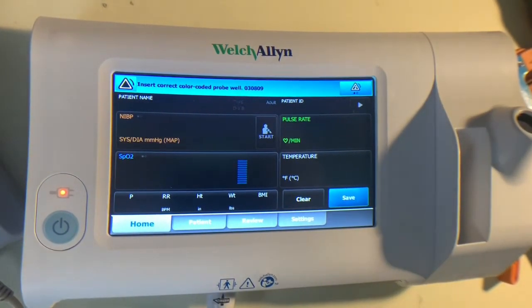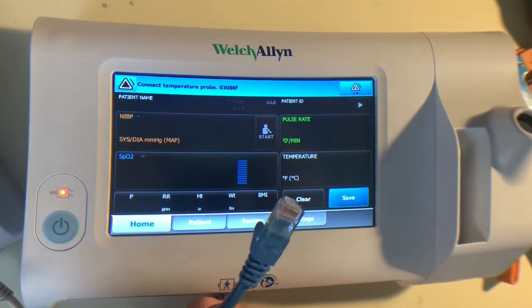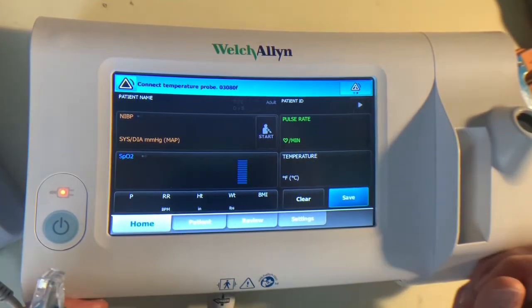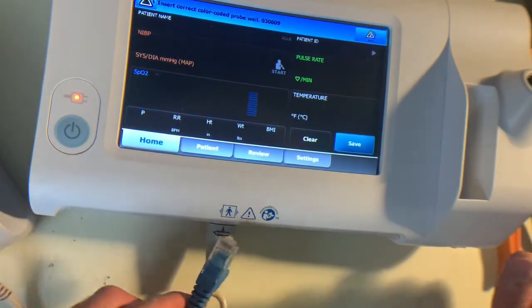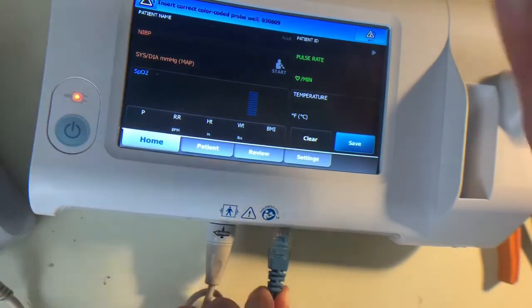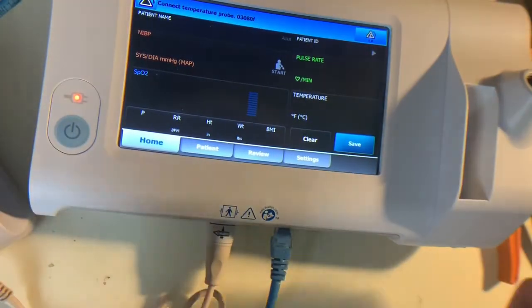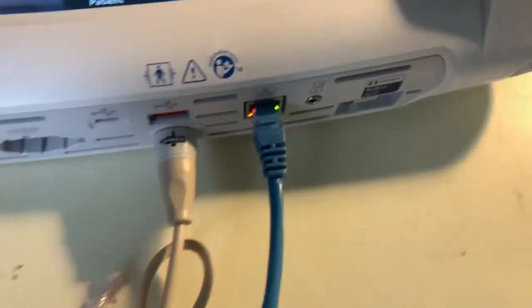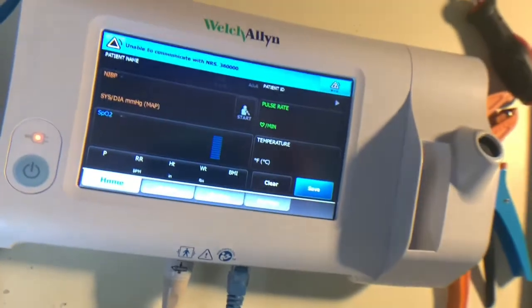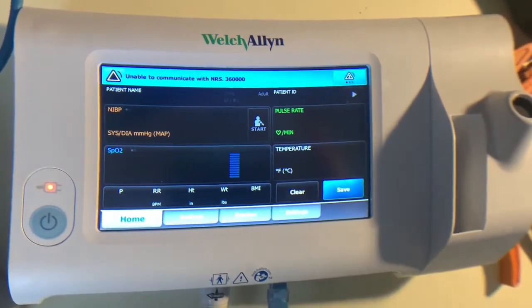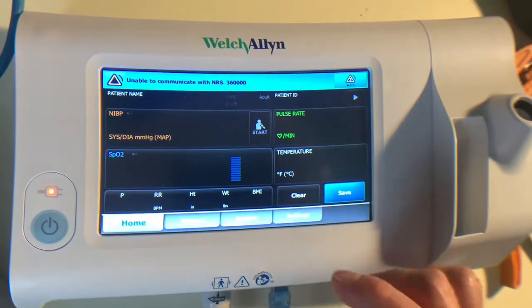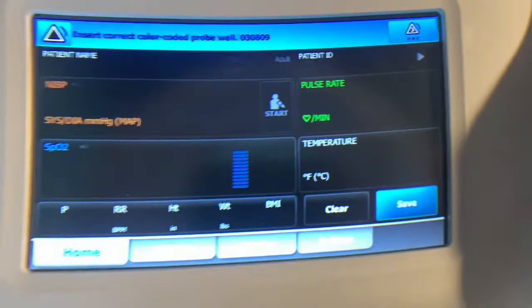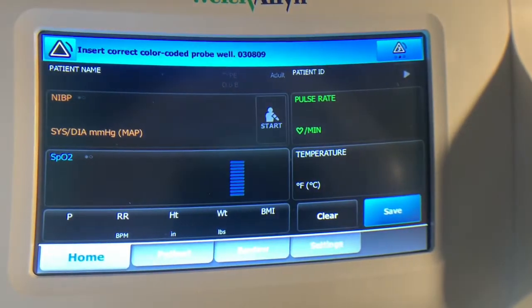To get this networked, first of all you need to have a valid network connection. In this case I'm using my own home network. I'm just going to plug it into the bottom here where the ethernet port is, and on the unit itself I'm going to make this a little bit more visible.